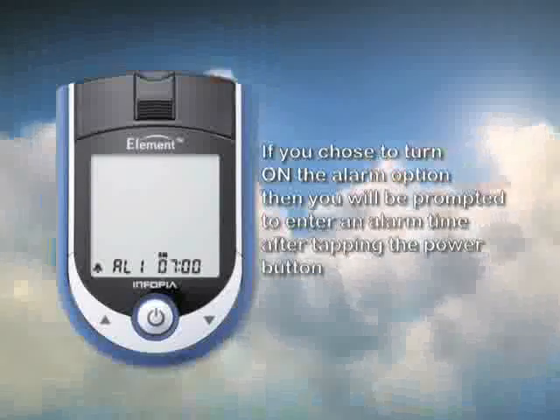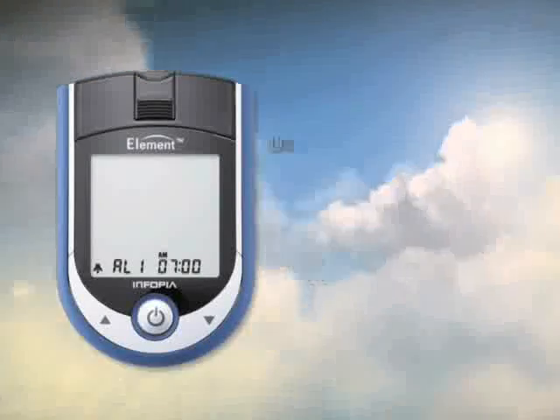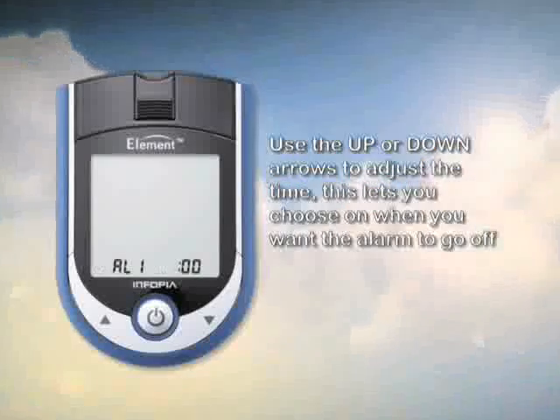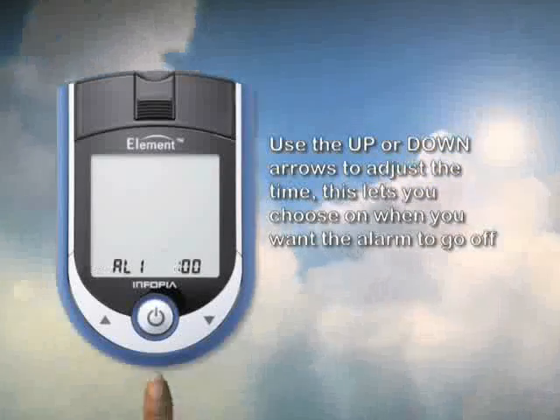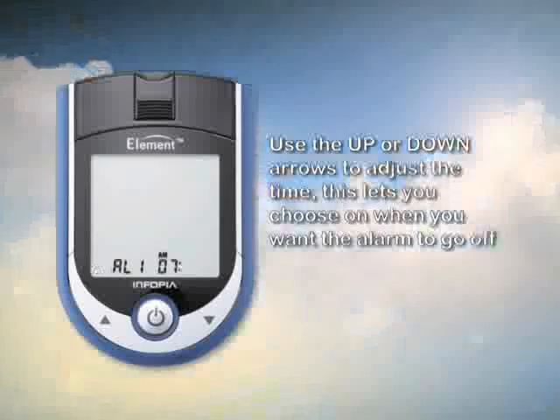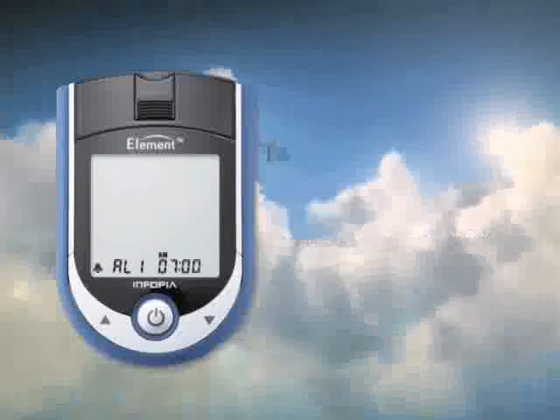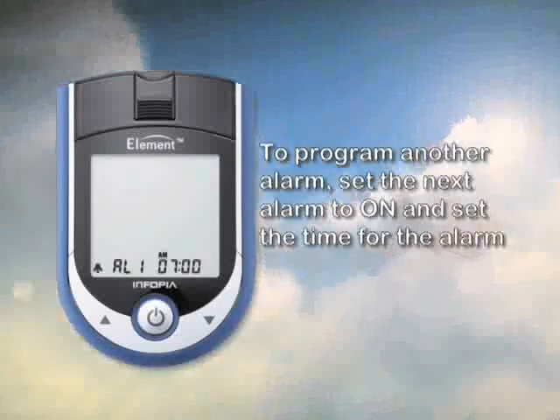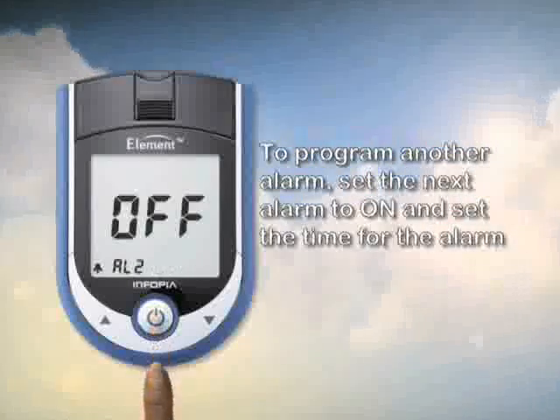Use the up or down arrows to change the hour accordingly. Pay close attention to whether it's a.m. or p.m. Then tap the power button. The minute will begin flashing and you will use the up or down arrow to change the minutes accordingly. Tap the power button.